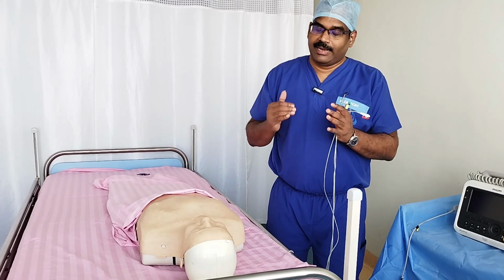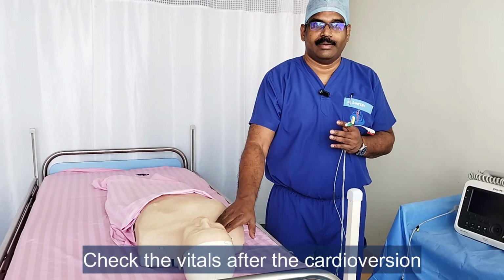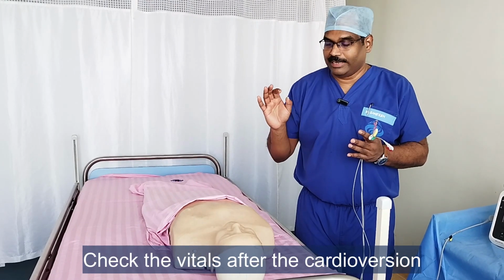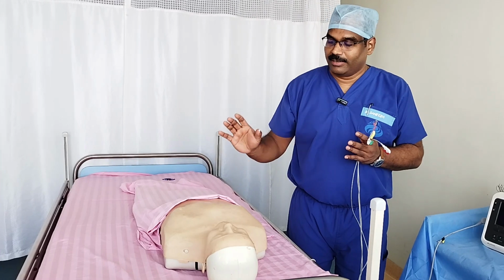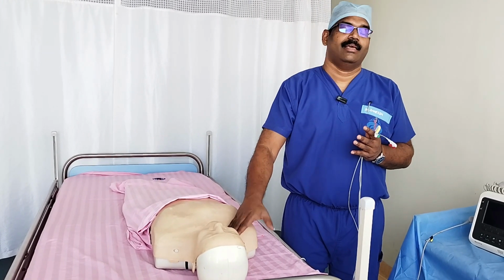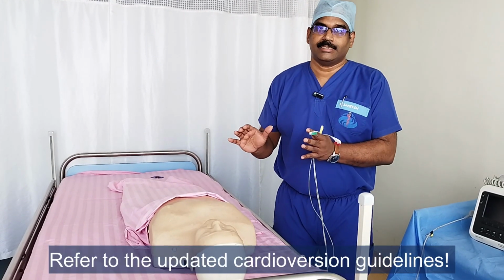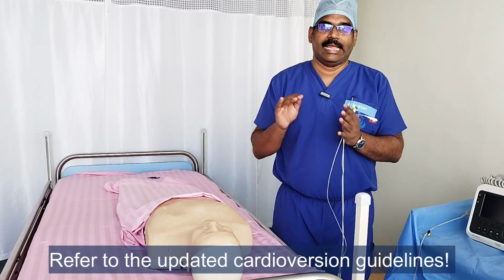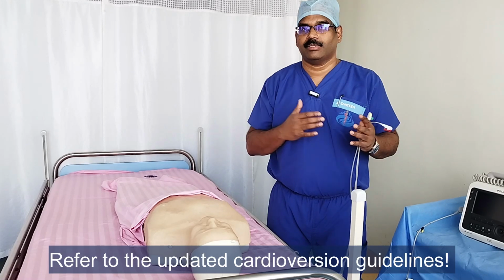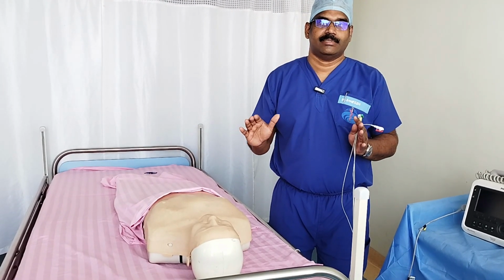Again, after any change in ECG rhythm, make sure you check the central pulse and make sure you are getting a perfusing new organized rhythm. So you need to be cautious, you need to be monitoring. Immediately after the procedure, check the vitals again, see that pulse is present. That's when you finish the process of cardioversion. If the patient's rhythm is not responding to a particular energy, you can repeat the procedure with a higher joules and repeat all the procedure once again. That's how you plan for synchronized cardioversion.